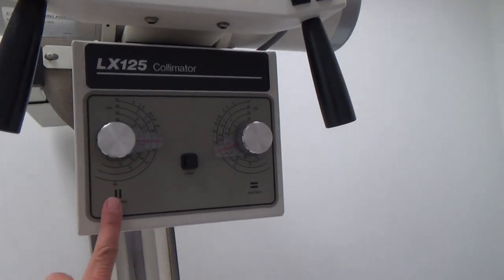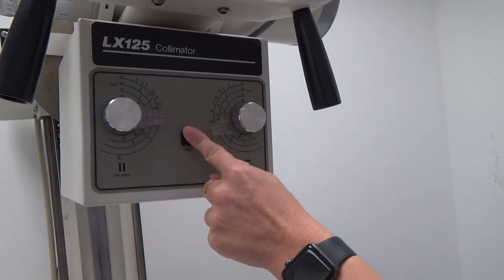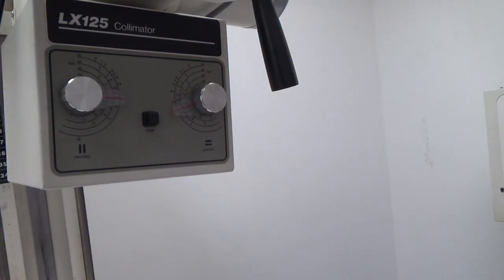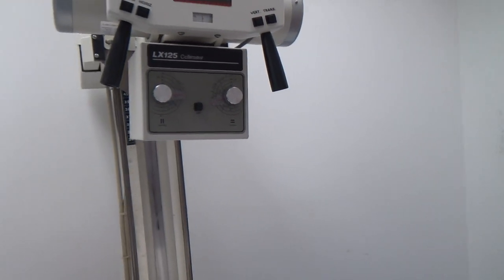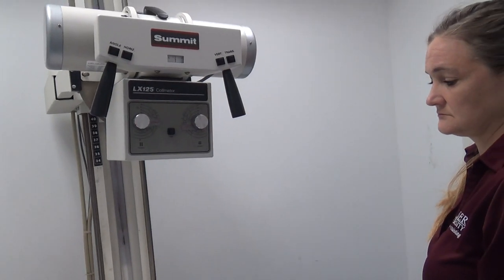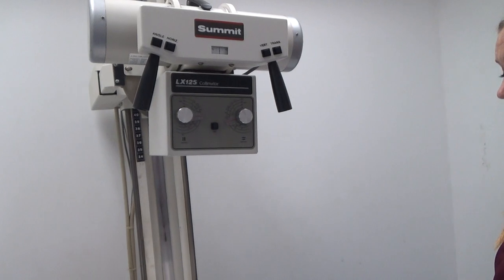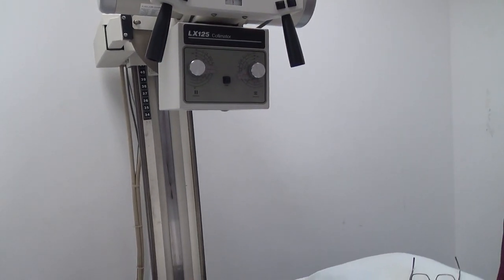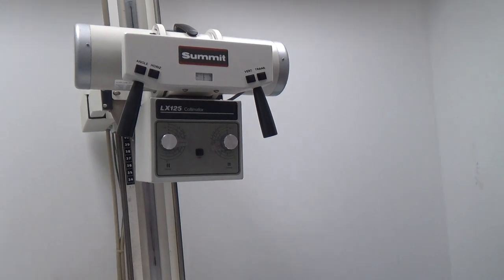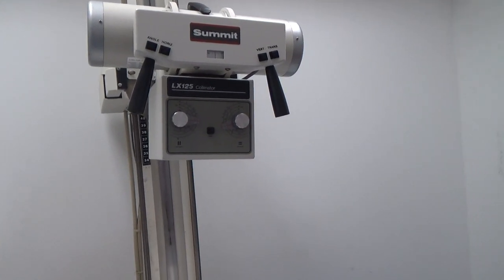Inside here is that collimator. Inside of the collimator, you've got filtration as well. That filtration is going to filter out the soft radiation that could potentially become absorbed because it doesn't have enough strength to get from the machine, from the collimator, through the air, through your patient, and to the image detector. So you're going to have that filtration in there, and there are also other shutters in there that can funnel that radiation down.